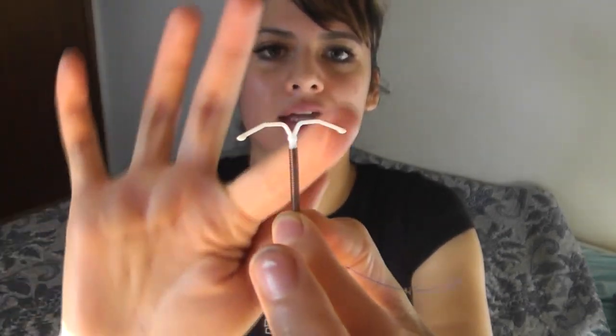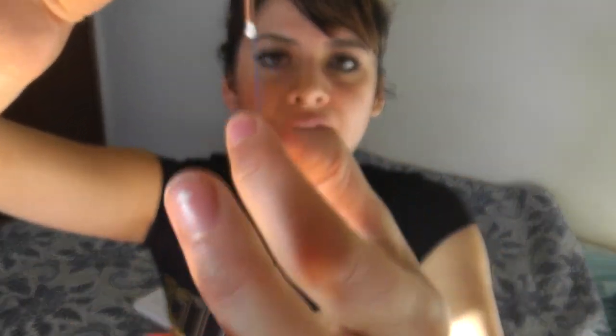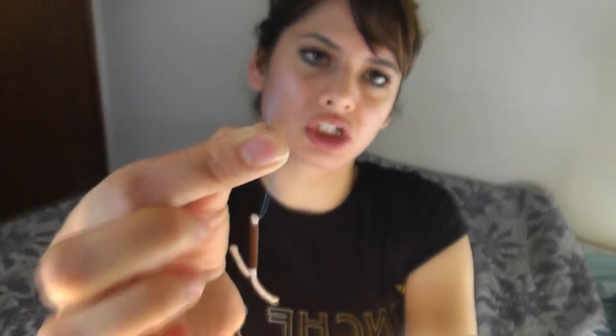Here's what it looks like. This wire part sits in your cervix, then it goes up into your uterus, and these two flappy things sit in your uterus. The string is what comes out of your cervix — you can feel the tips when you put your fingers up your vagina. It was probably sticking out about this much.